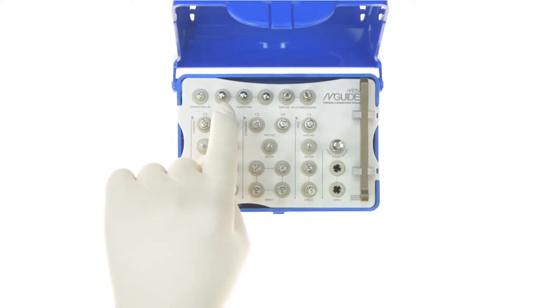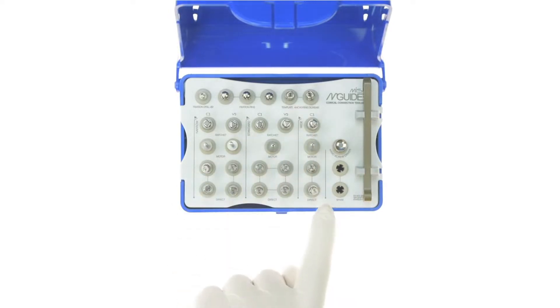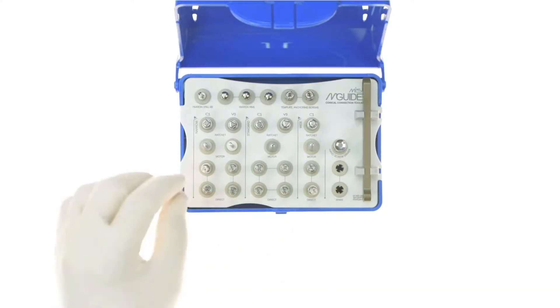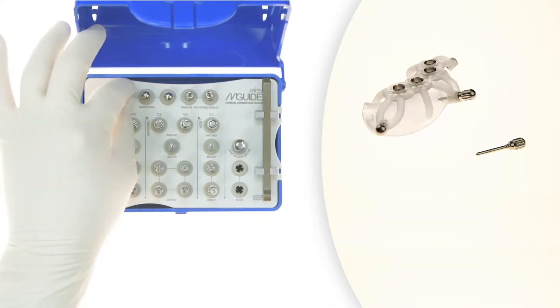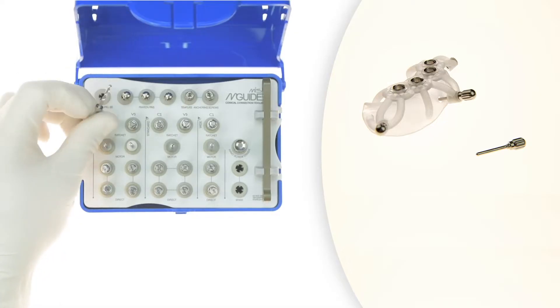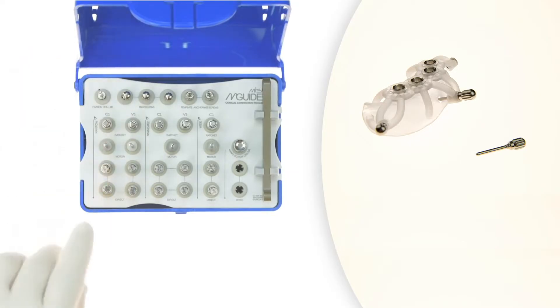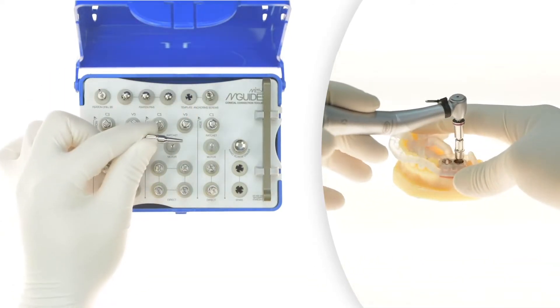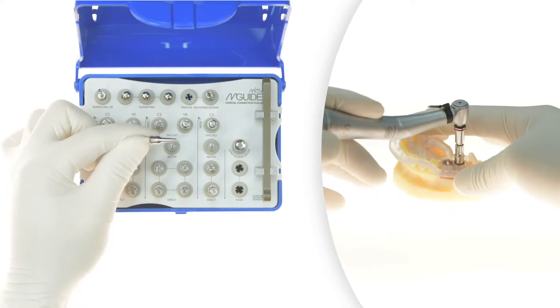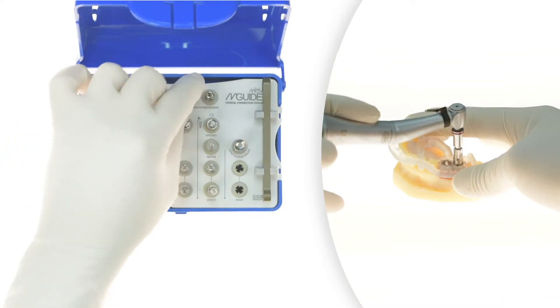Other tools featured in the kit are fixation pins, fixation screws, and direct implant tools. Fixation pins are used in areas where we lack teeth for stabilization of the guide; a narrow drill is used to create the path for the pins to go into and stabilize the guide in bone — this is commonly used in edentulous cases. Fixation screws are used to stabilize the guide through any one of the sites where an implant will end up, meaning an M-Guide with multiple sites can be stabilized using one of these sleeve sites right after the 6 mm starter drill has been used.